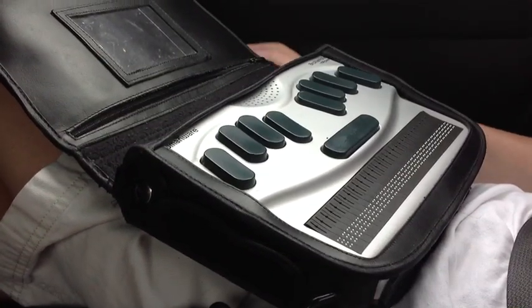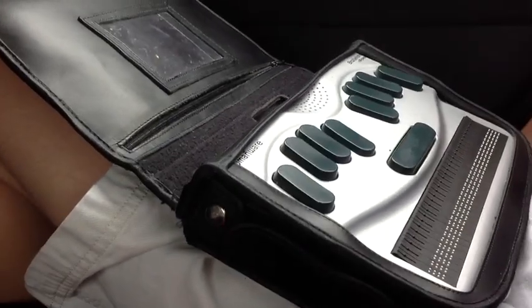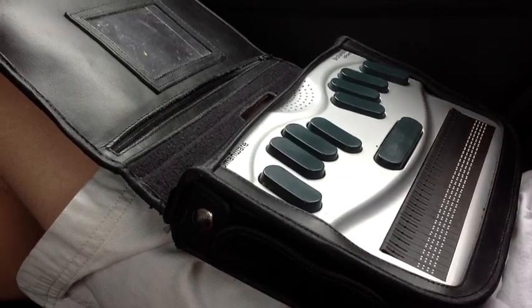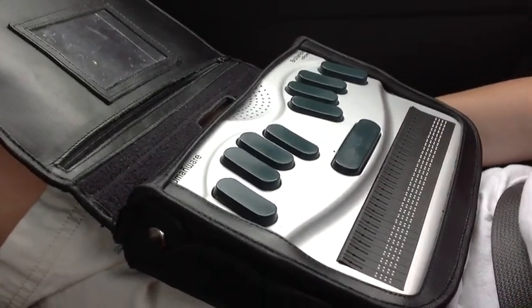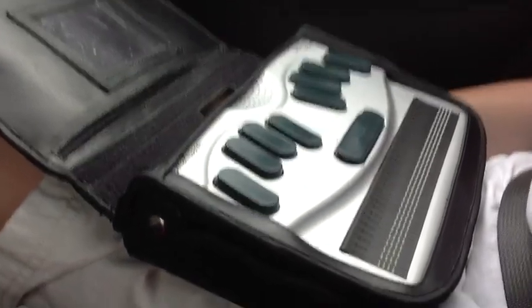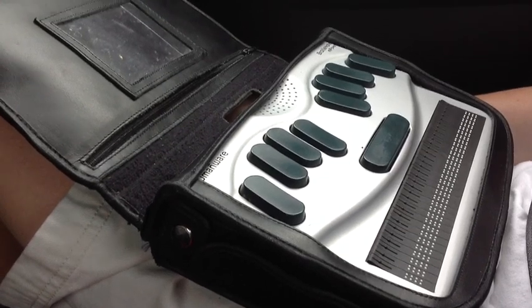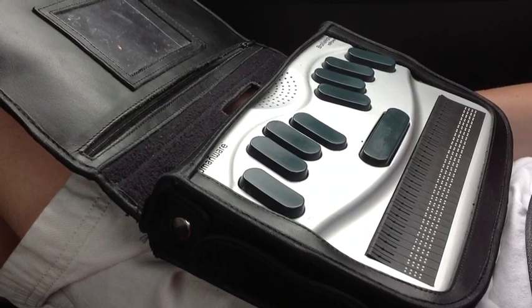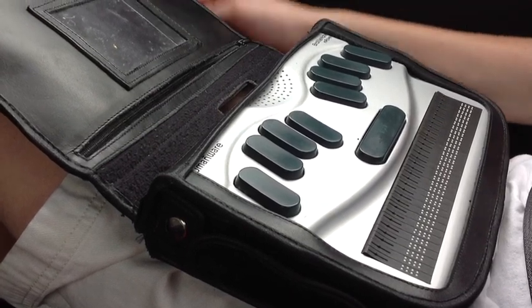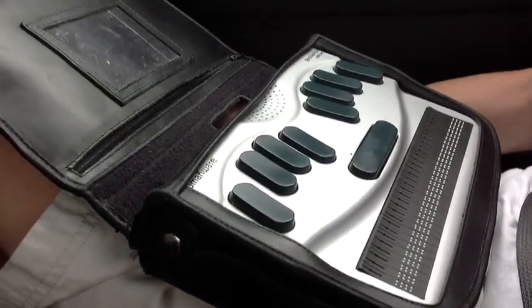Hello everybody, this is the Tech Network 98 here, and I've got a special guest. It is my friend, a great tech expert with a bunch of blind and visually impaired technologies. He's got a review here going for what's called the BrailleNote — a computer designed for the blind based off of Braille, which has a full Braille keyboard and 32-cell Braille display. There are multiple models of the BrailleNote; he is using the second-to-latest one called the MPower. Recently in late 2009, the BrailleNote Apex came out; we'll be getting a review for that one out later, possibly. I'm going to hand it over to Brandon, as we'll kind of side-by-side be talking about this device.